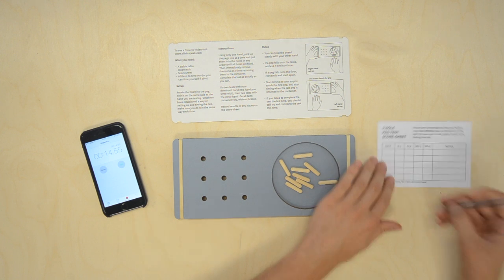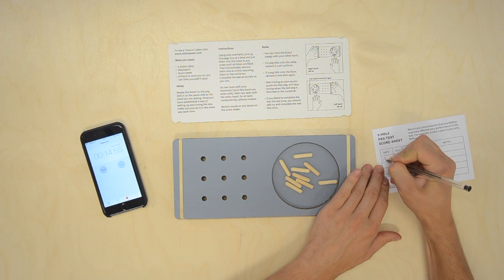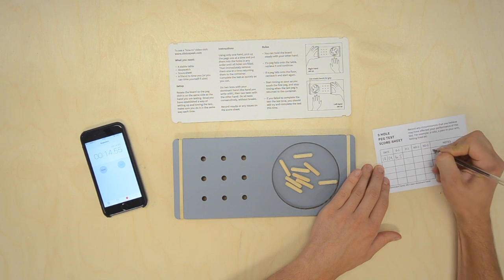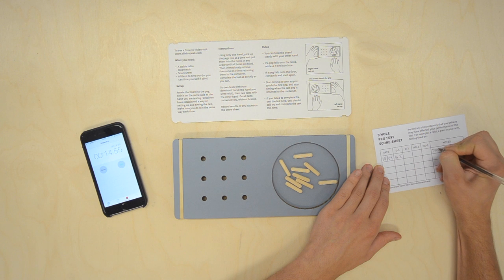Make sure to record all the results on the score sheet and any circumstances that you believe may have affected your performance of the test. For example, a cold, a pain in your arm, or feeling tired.